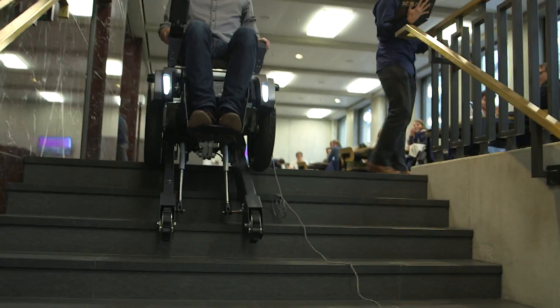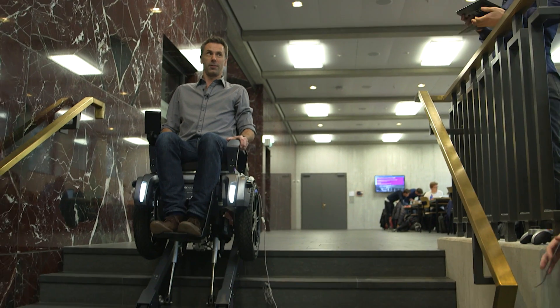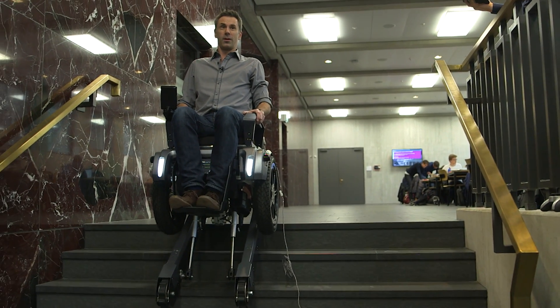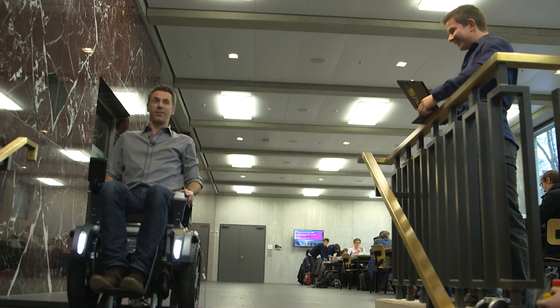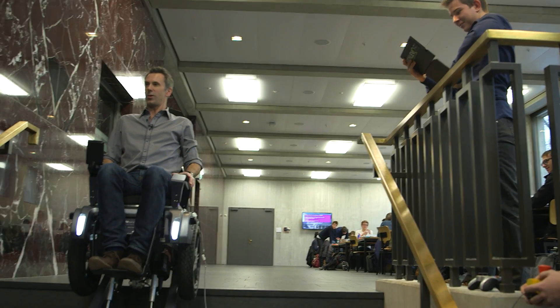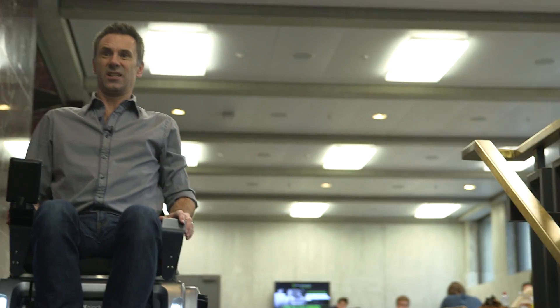If this tumbles forward, what is the approved evacuation procedure? Oops, I lost the keyboard. One second, don't mind me. Don't worry about me. You plug that keyboard back in. Anytime you're ready. It's back in. Now let's try to go a little further.